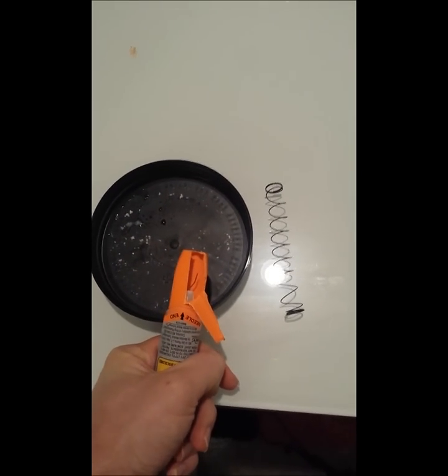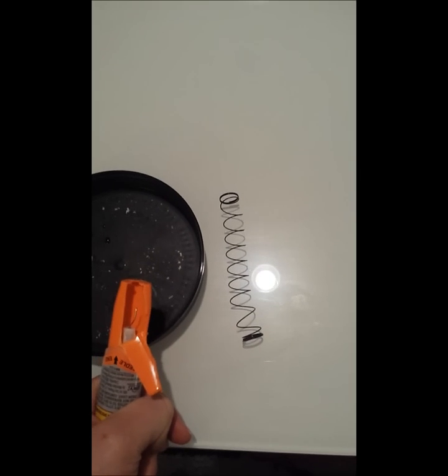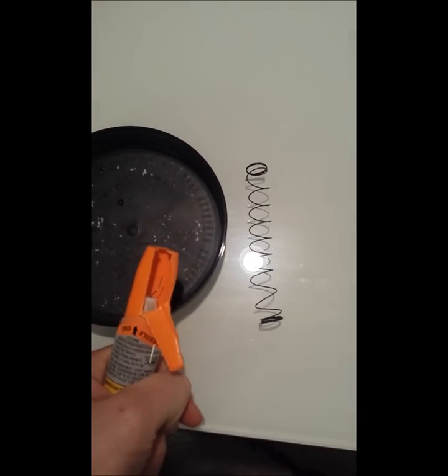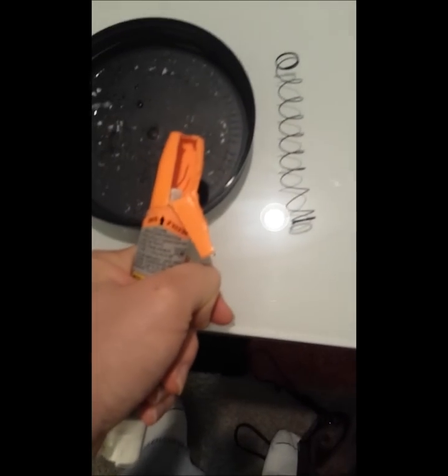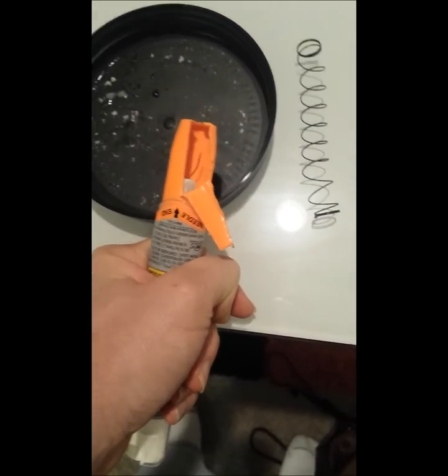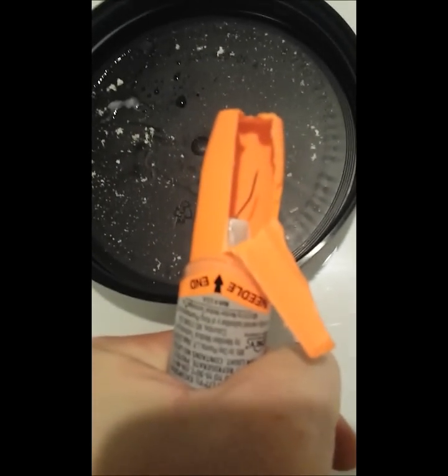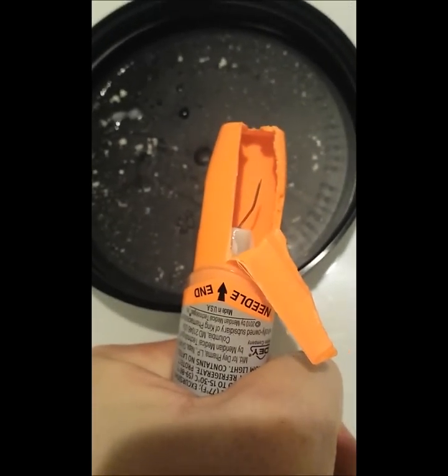I went back and actually disassembled the EpiPen a little bit after setting it off that first time. As you can see, there's a spring on the right-hand side that helps to push everything in, or push the needle down, and then on the left there you can see — I'll try to get it up close — but that's the needle for the EpiPen.